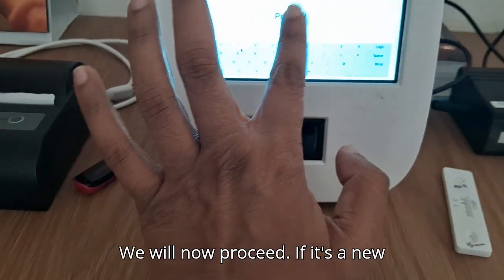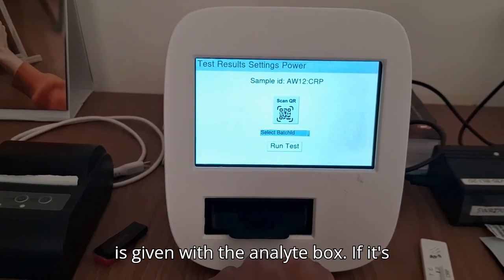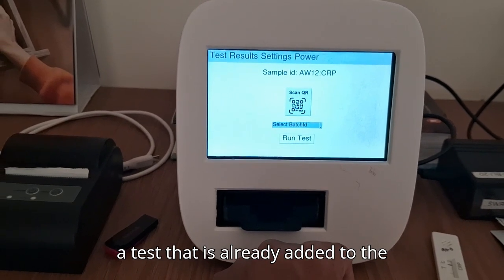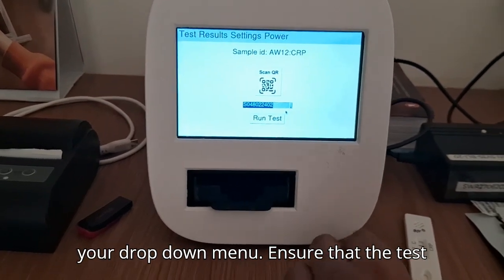We will now proceed. If it's a new test or a new batch of test, you can click Scan QR and enter the QR code that is given with the analyte box. If it's a test that is already added to the device, you can just go to Select Batch ID and select the batch from your drop-down menu.